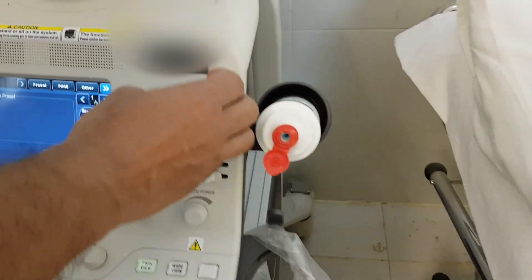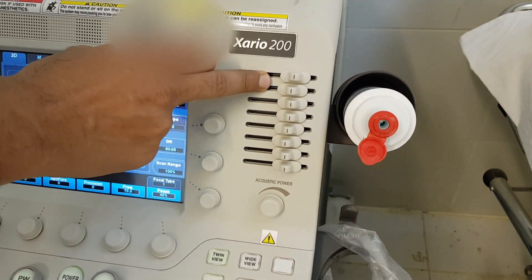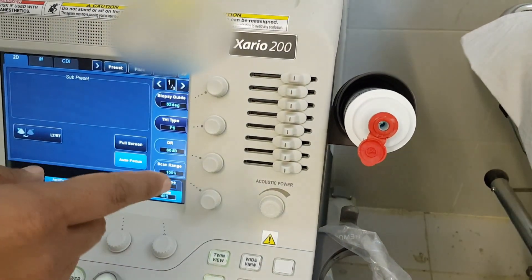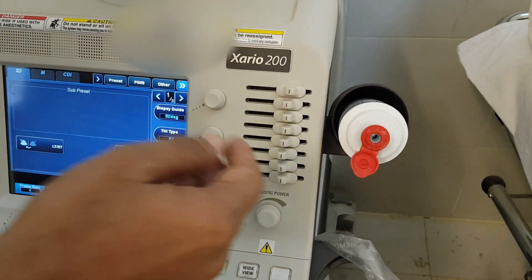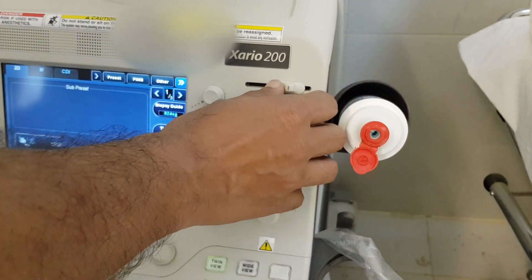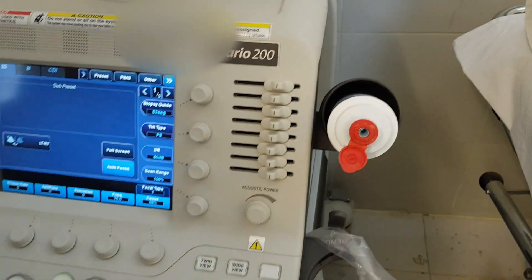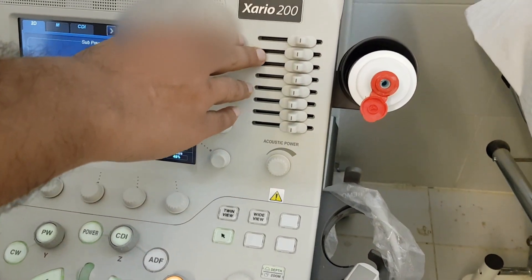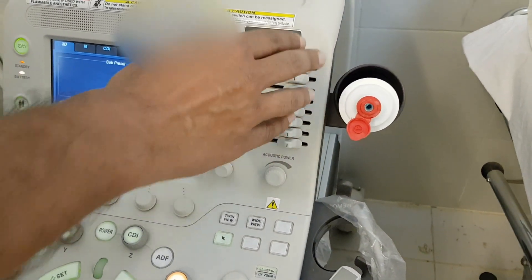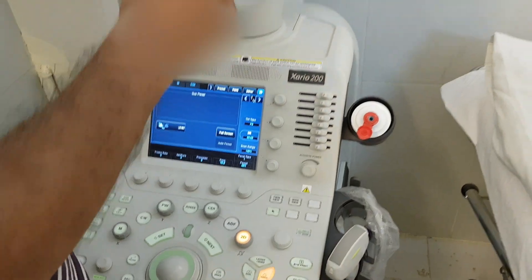You will come to the right side of the panel. These are many knobs. According to the manufacturer or vendor, the instructions are in pre-default settings. After that, you can adjust the contrast, frequency, and gain.